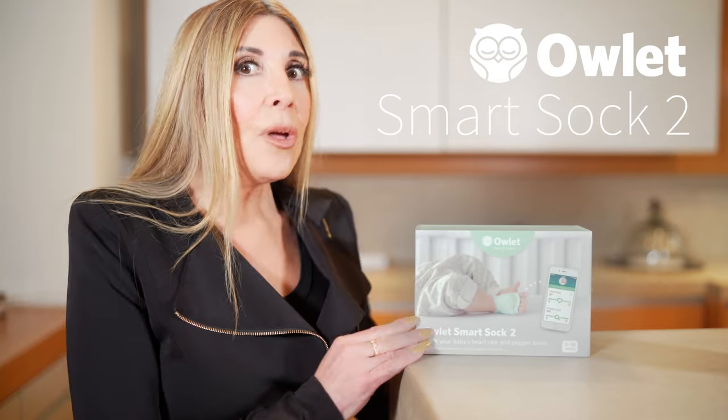Hi, I'm August Brice with Tech Wellness, and this is the third in four videos we're doing on things that you can find in the baby's room that are wireless. We did a video on how to create a wired baby monitor and several people wrote in asking us to test different things — this is one of them. This is the Owlet, a wearable baby monitor that gives you real-time readings of heart rate and oxygen levels, and it's probably going to have some wireless radiation, so we're going to check it out today.